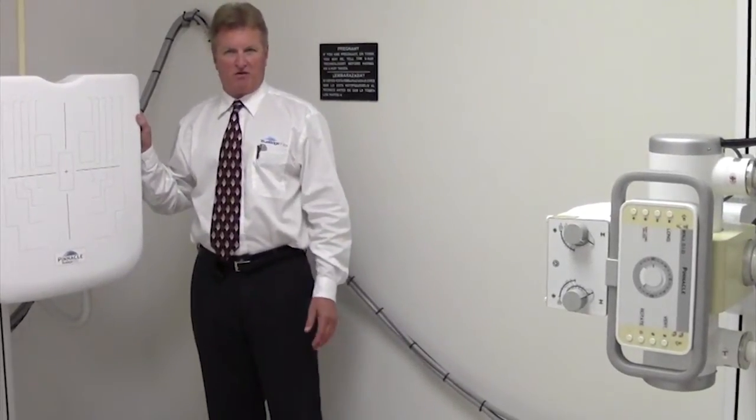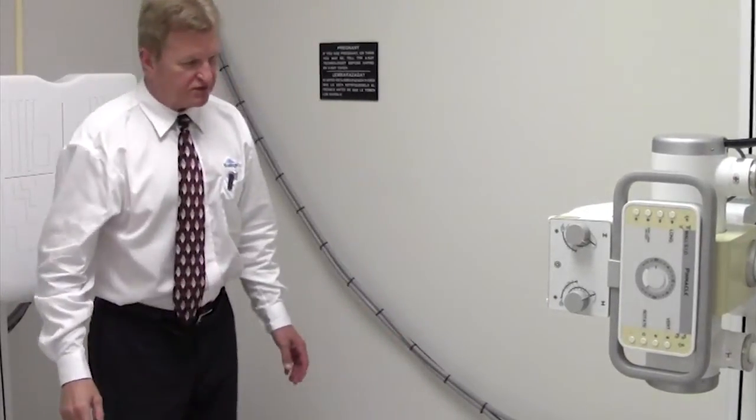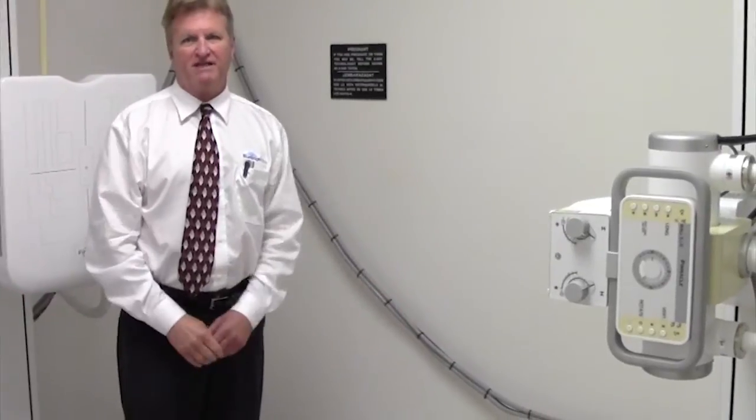It can also be in an analog or a CR with a cassette tray. This particular installation is in a 10x11 size room.